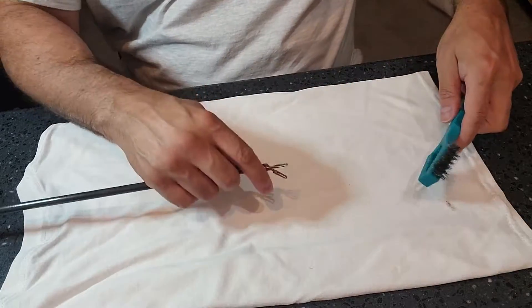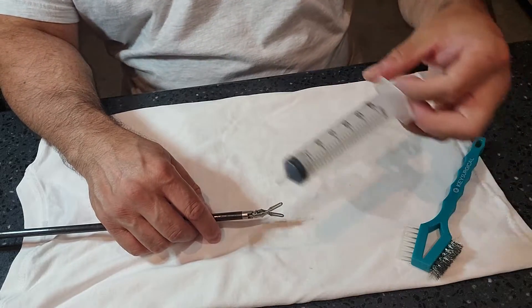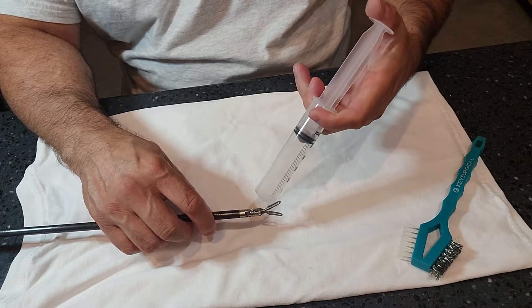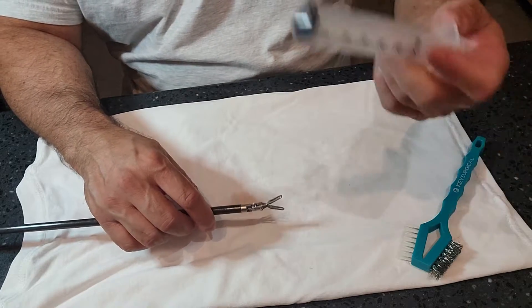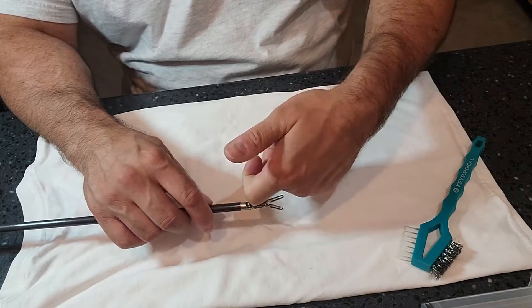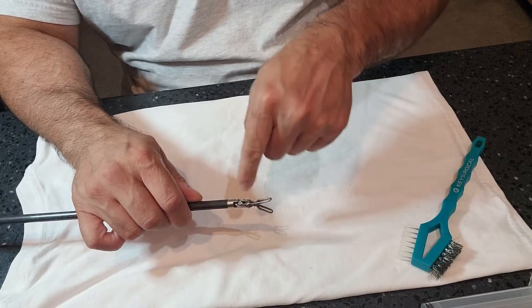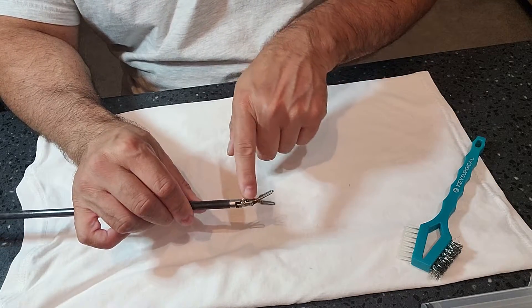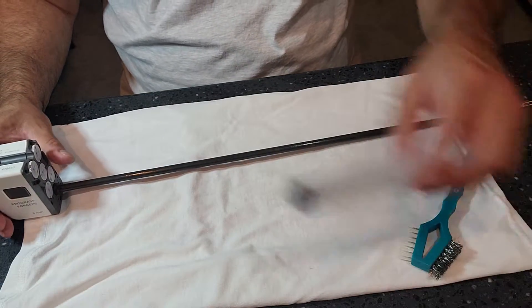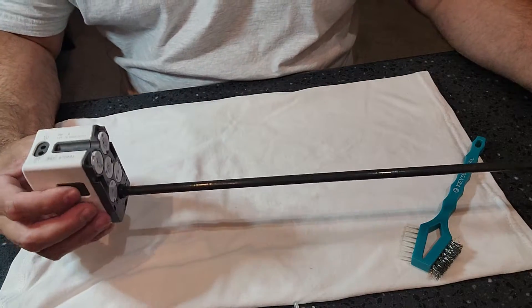Then you're going to submerge under clear water and flush the actual components — flush these ports using a water gun under clear water, not solution. It's asking you to spray these little joints. After that, it's going to tell you to prime again, remove the air from inside, dry it out really well, and then it's going to ask you to put it in the ultrasonic.